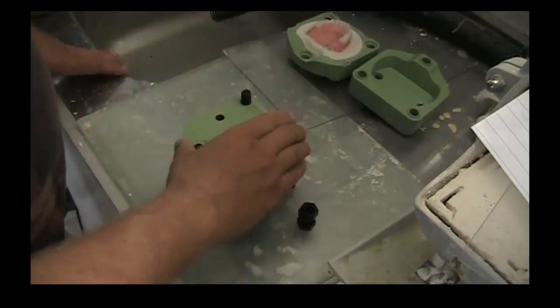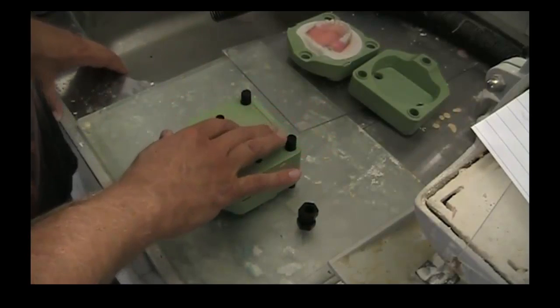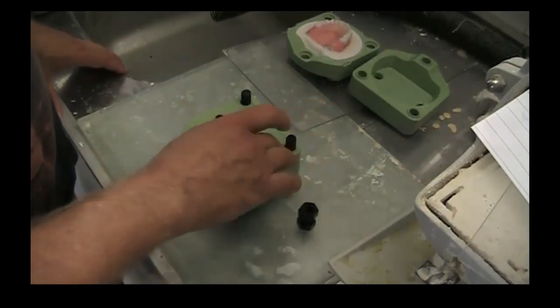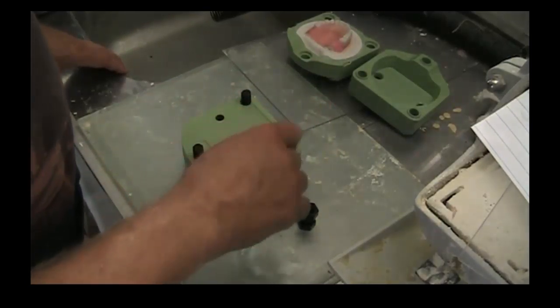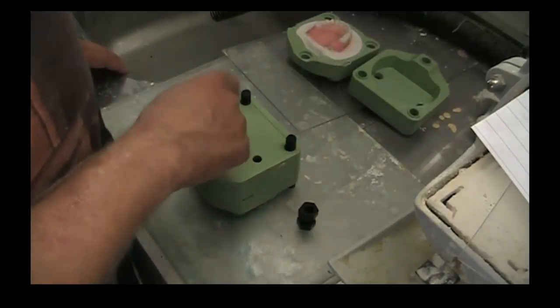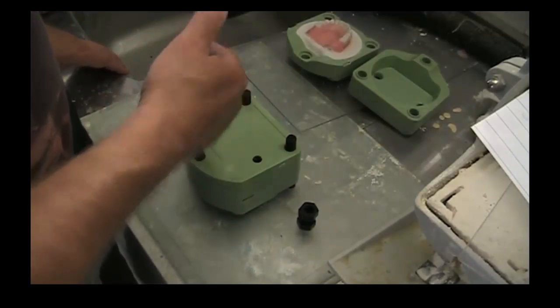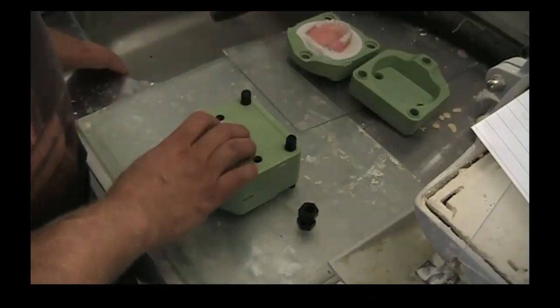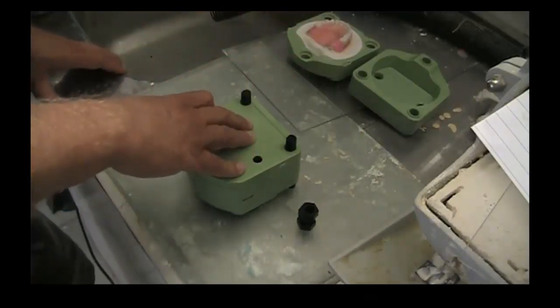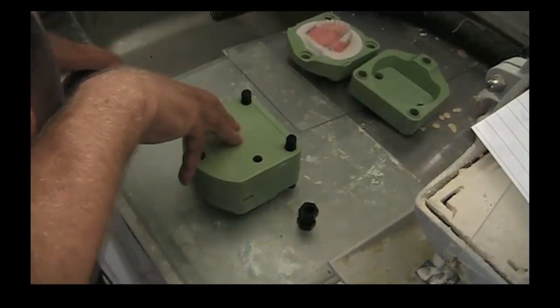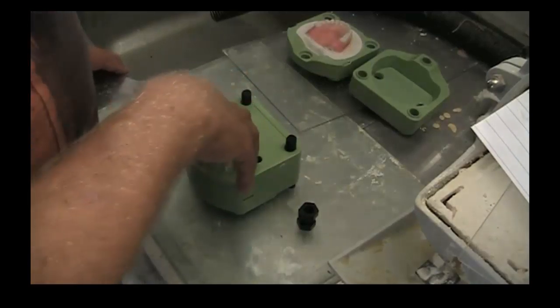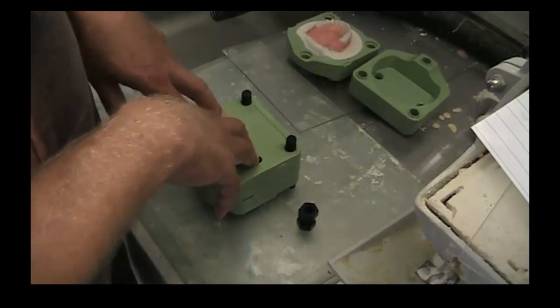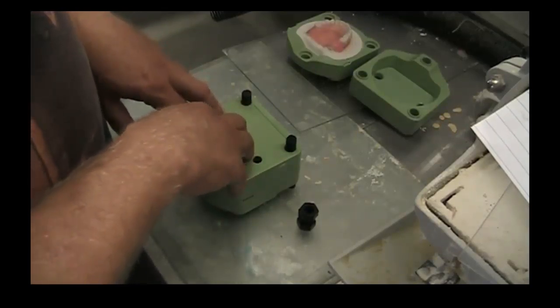I wanted to touch on the flask itself because there has been some buzz about flasks. People have used them in the past and had certain experiences. I also want to show you a couple of things that I do to make the process easier and to give your materials and equipment a little better way to work and better longevity. I'm no newbie to this technology - I've probably been curing with microwave for about four years.